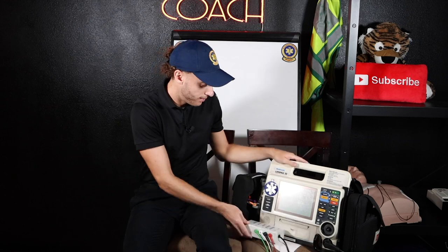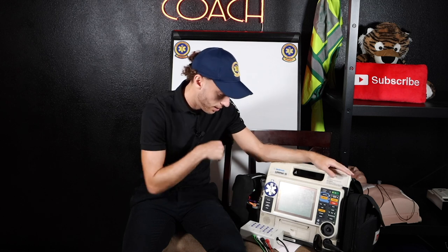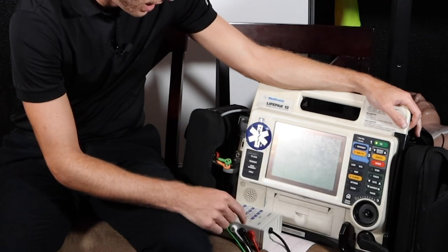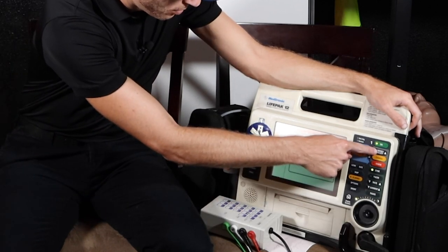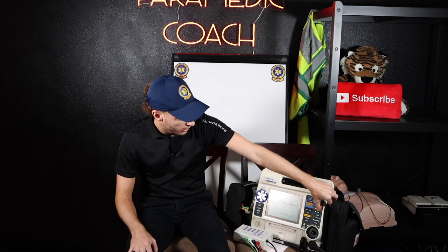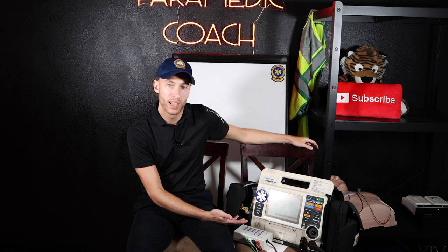Now just to give you an example, I'm going to put this patient into SVT. So now what we're going to do is synchronized cardiovert SVT. So let's go ahead and do it. I'm going to hit sync button first — I hit sync. It's going to match up with my QRS's. Now I'm going to do energy select — I'm going to move down, go to 100 joules. Now here's the charge — there's your noise, you're going to hear it. I'm clear, you're clear, everybody clear and shocking. So there we go — we've delivered the energy and it'll print it out.